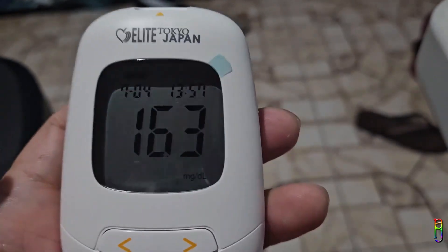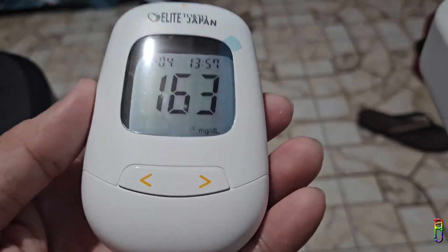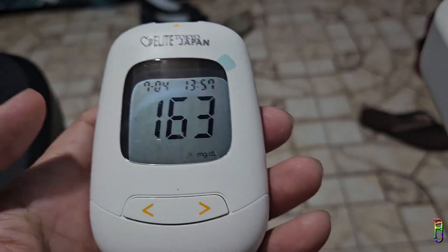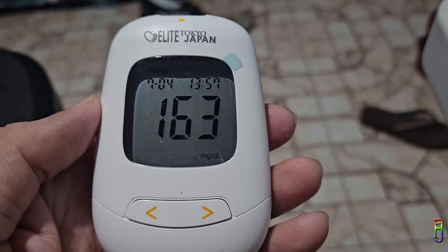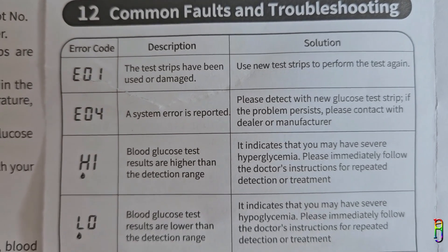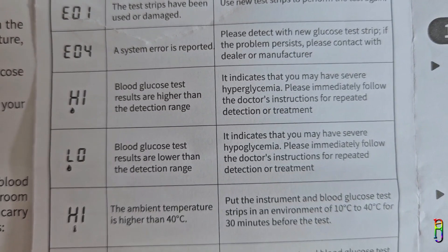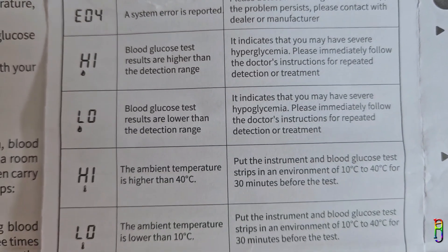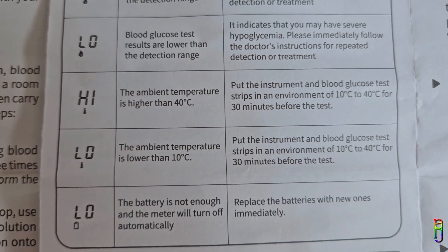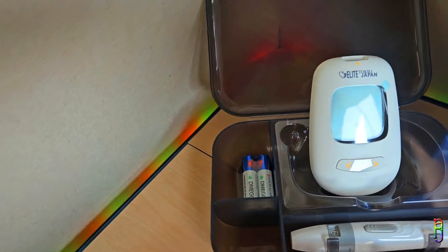Pressing the left button goes back to the previous record — that's how easy it is to view all your previous blood tests. If you leave the device without pressing anything, after 15 seconds it will automatically turn off. In case you encounter an error while using the IGM 107 glucometer, the manual lists the possible error codes, their meanings, and how to solve them — you can pause the video if the scrolling is too fast.